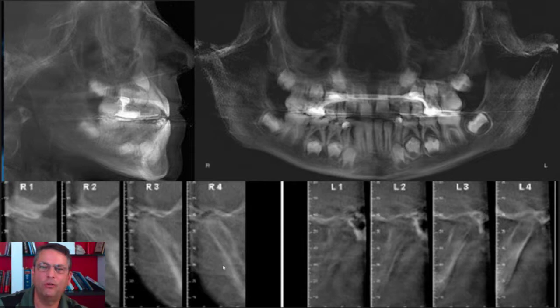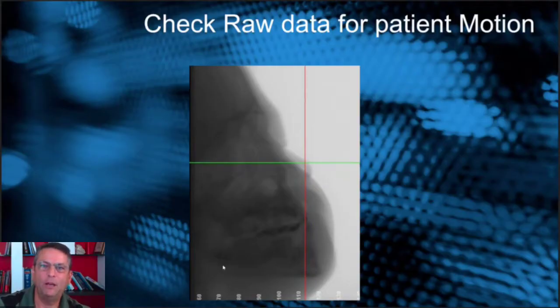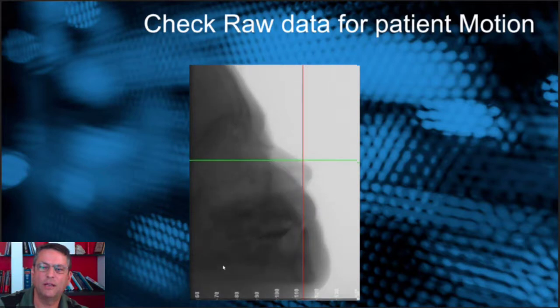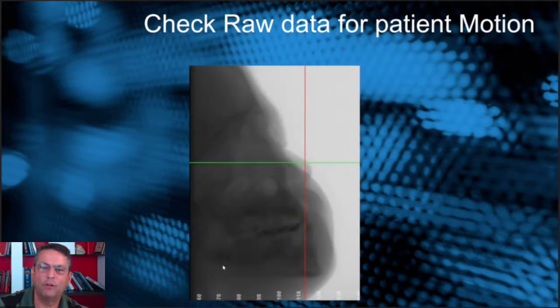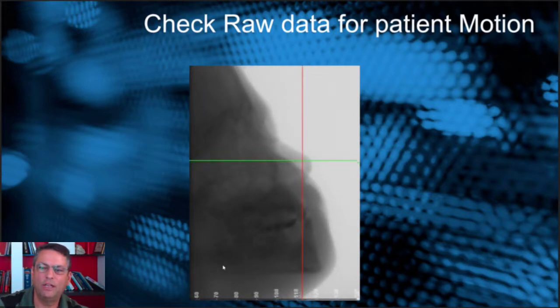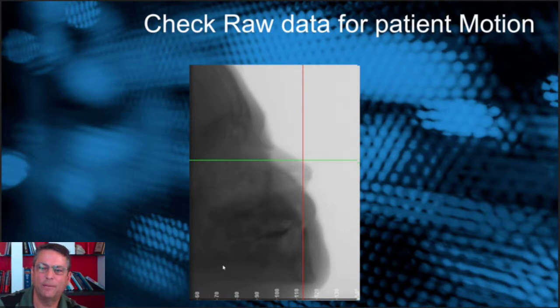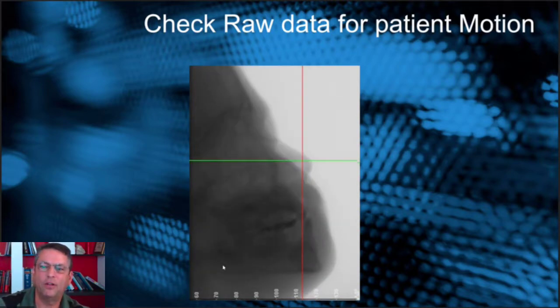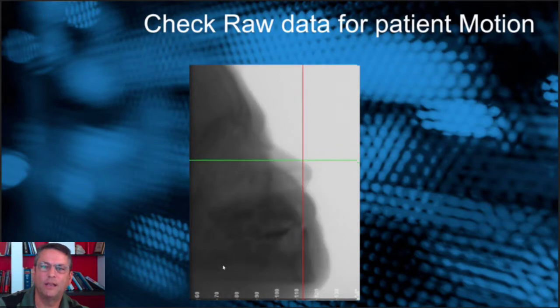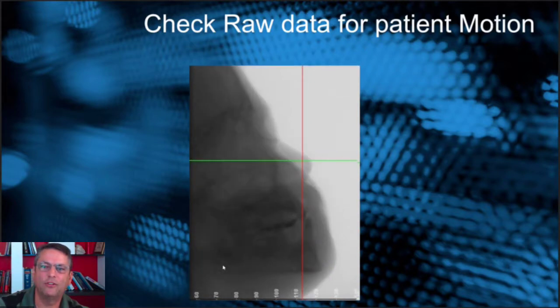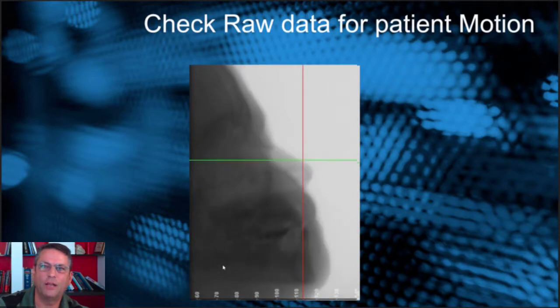We need to find out what we can do to improve patient motion on all of our scans. Depending on which machine you have, you might be able to look at the raw data, which we do in some of our scanners. You can walk through slices in the scan and see whether the patient moved or not. Looking at this particular raw data set, we can see the patient moved their head and opened their teeth, which affects the quality of the scan. I would show the patient this and say, 'This is when you moved — we need to take this again,' so they understand the problem and can hold steady on the retake.